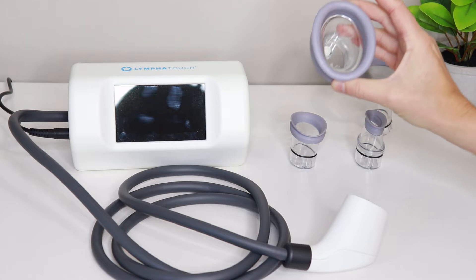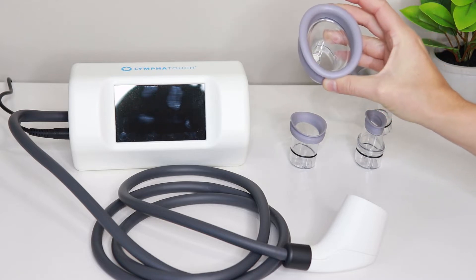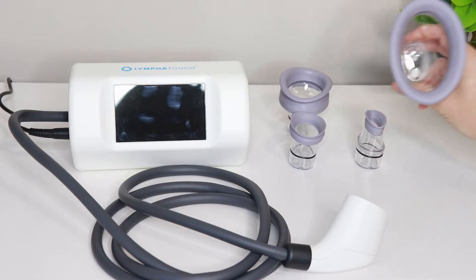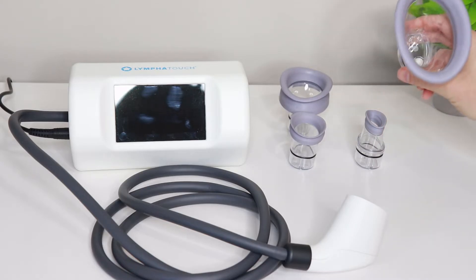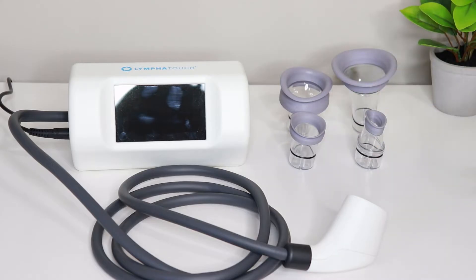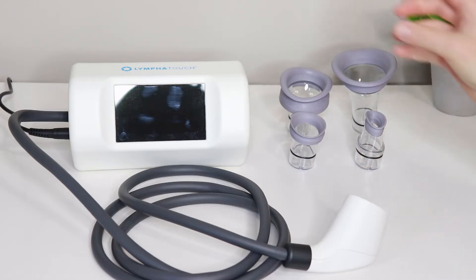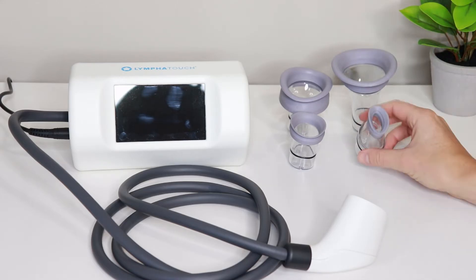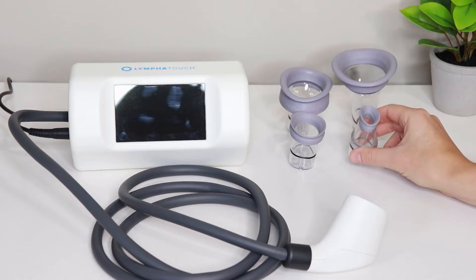As we get a little bit larger, these are nice for the full arm or even the lower leg into the back. The largest one is nice for the thigh, the back, and overall the full body. We may use different sizes for each individual — larger ones for lymphatic drainage and smaller ones for scar regions or fibrosis in smaller crevices like around the tendons, the knee, or around the ankle.